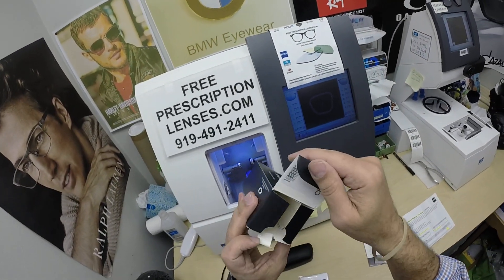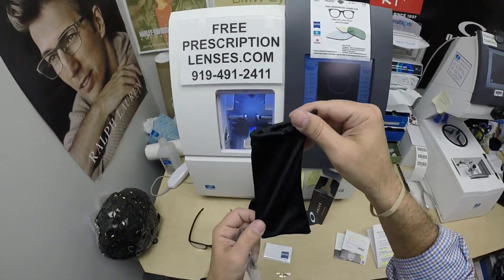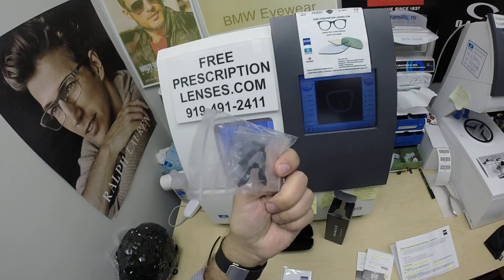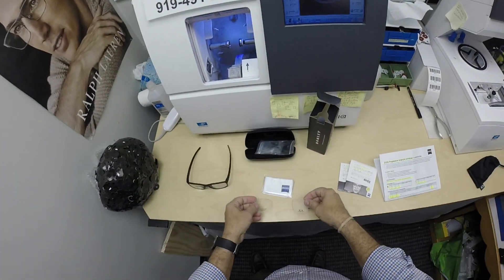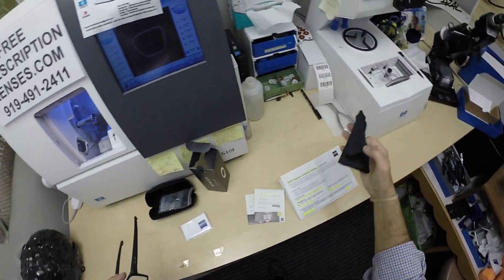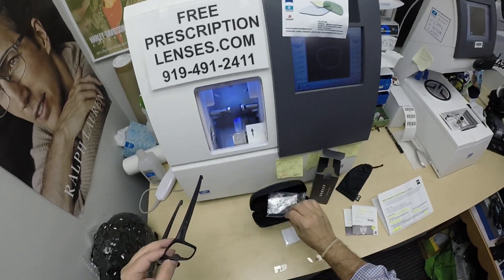He got the premium anti-glare coating on the premium progressive lenses, prescription for the right eye, prescription for the left eye. You're going to get the original packaging from Oakley with the junk mail on the inside, the hard shell Oakley case. Down here I've got the cleaning cloth slash carrying bag. This frame comes with multiple nose pads — not all Oakleys do, but this one does, three different ones, so you get the best fit. And of course the original demo lenses, Zeiss's microfiber cleaning cloth, and my premium microfiber cleaning cloth. I'll have instructions on how to care for your frame and lenses, but for all three cloths — the Oakley, mine, and the Zeiss cloth — as well as the case, so they will last you for years.